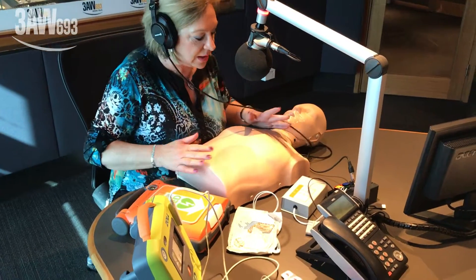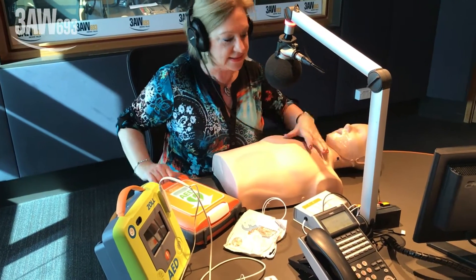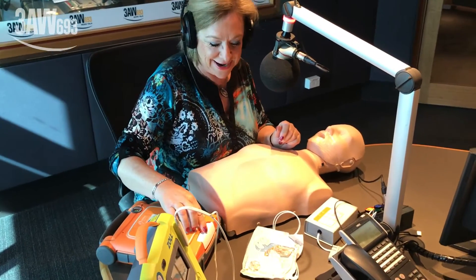It's a demonstration mode only on the mannequin sitting in front of her. His name is Preston — he doesn't answer back, he just does as he's told. He's got a lovely flat stomach; he must work out. Let's go.